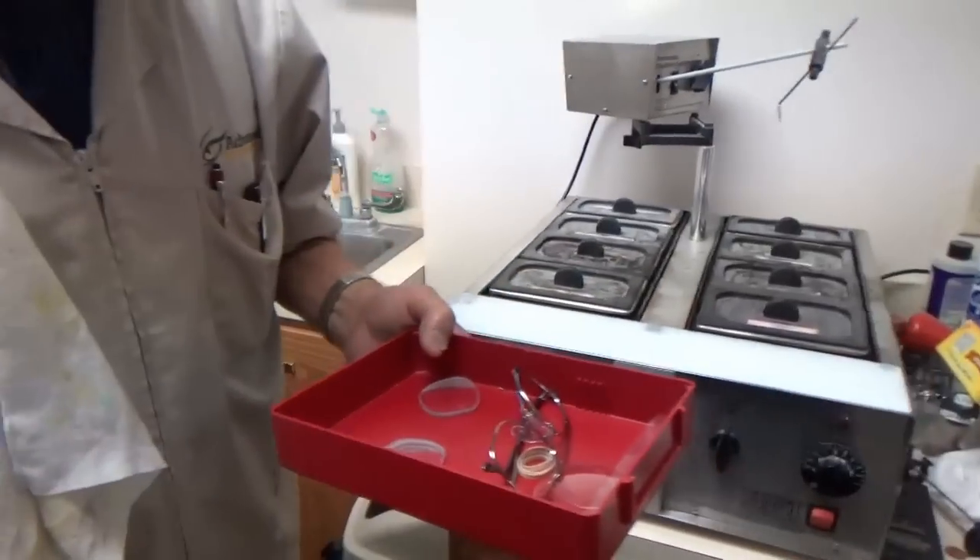This step doesn't take too much extra time and it's easy to do. It was nicer when the machine did it. Everything's nicer when the machine does it automatically for you.